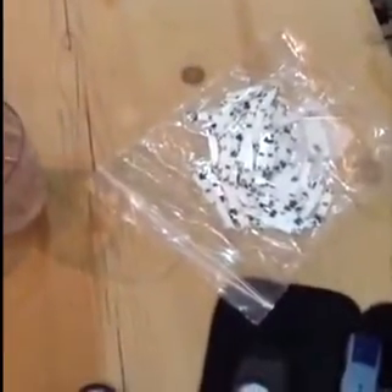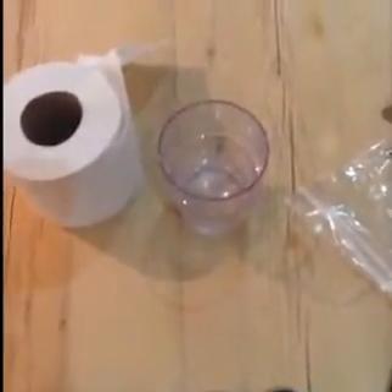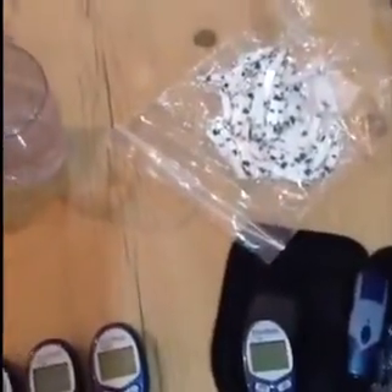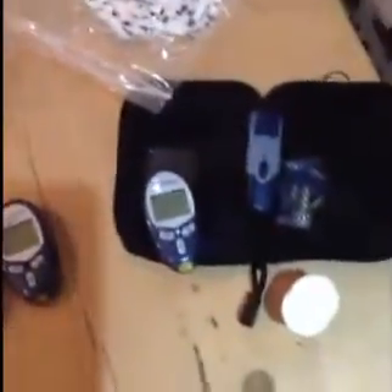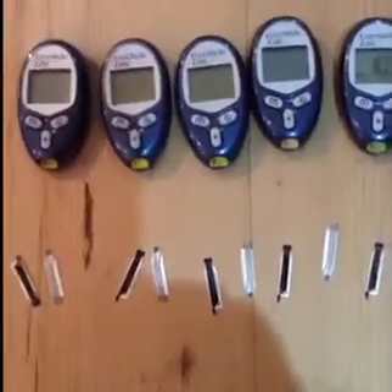The other thing I'm going to do is — this is a bunch of used test strips, so they've already got some dry blood caked on them. I've got some boiled cold water here to clean them, and just some regular toilet roll to do that cleaning. In a second I'm going to crack open five — one for each of these — and I'll use a normal clean test strip to test against. I'm going to go into what chemicals are used to make these later on. I have no working knowledge of chemistry or physics or anything like that, but I'll just explain what I found out was in them anyway.